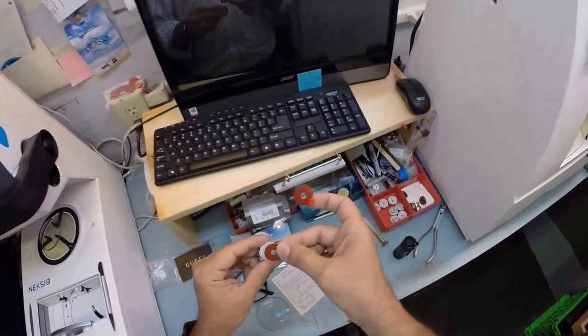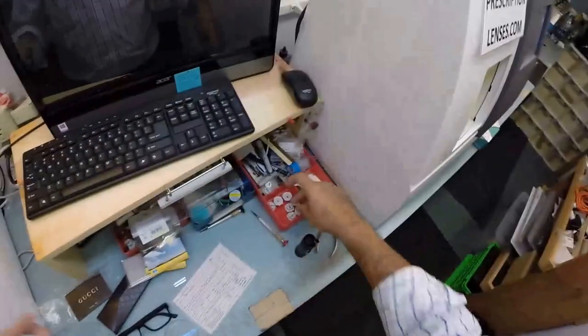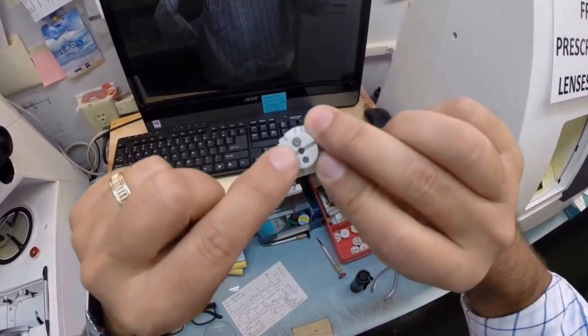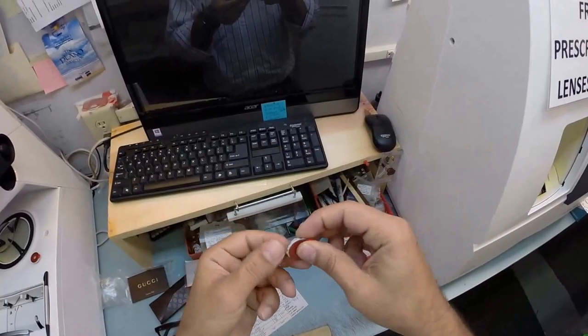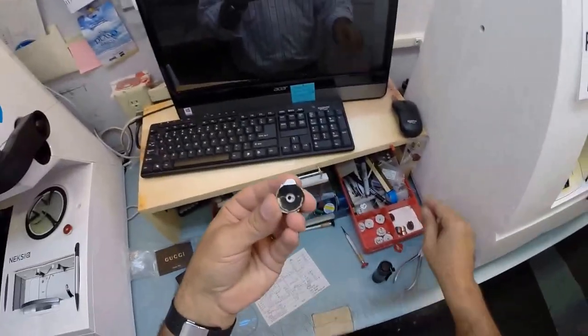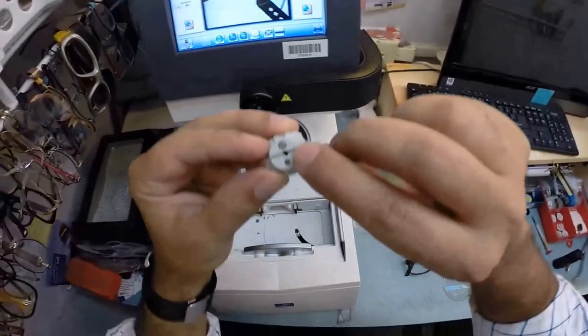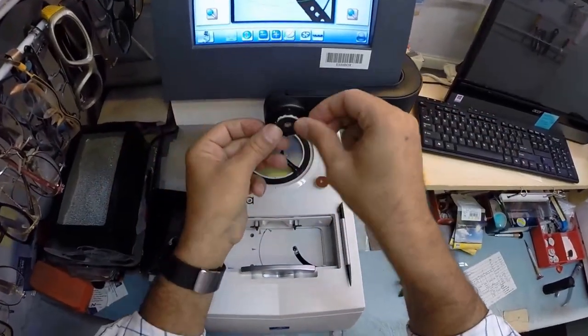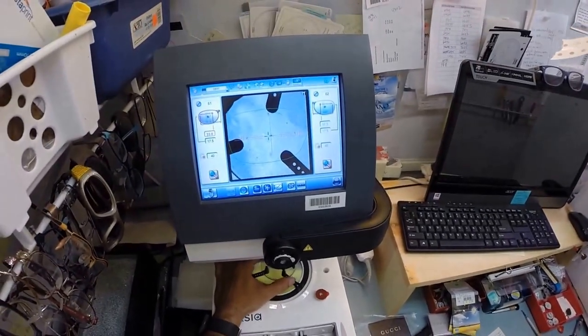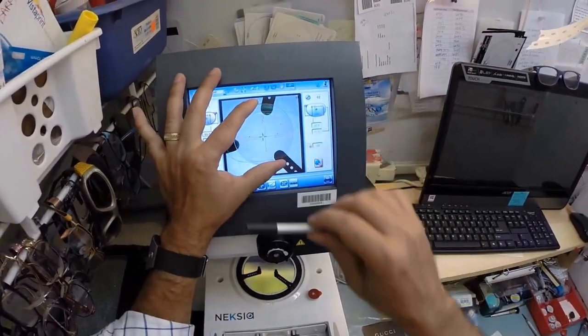The black side is the sticky side. I do not have a magnetic personality. Let me attach that to one of the blocks. Put that over there on the platform. Get the second block ready. Now on the back is a little silver button. That is a magnet. It's going to do its job twice tonight. The first time is right now. I'm going to pull the paper away to make the black side sticky. I'm going to marry this magnet to something magnetical inside the arm.